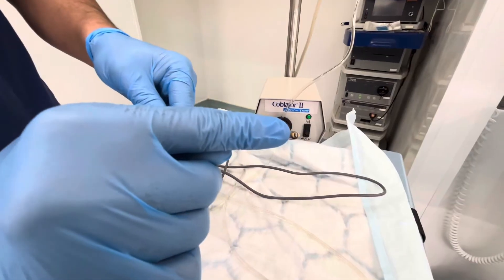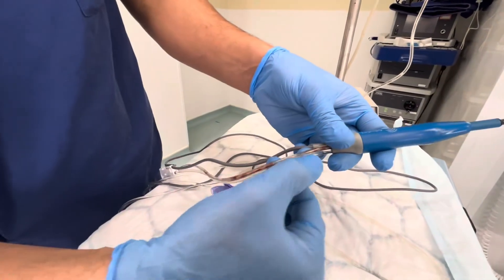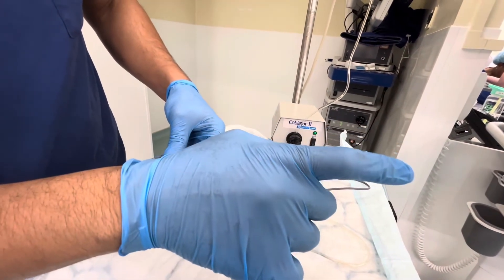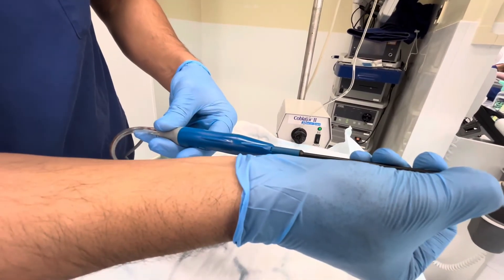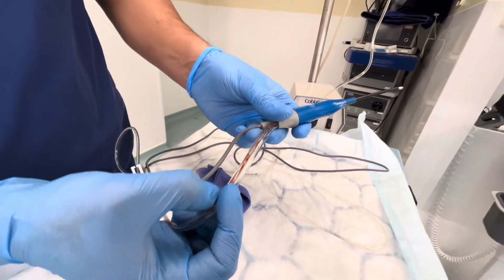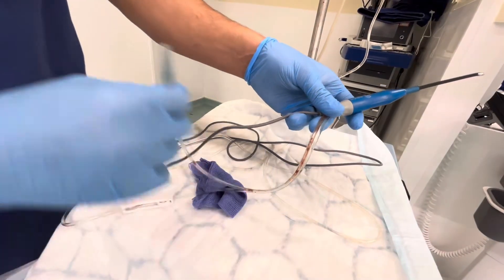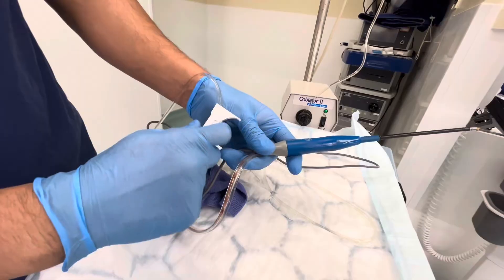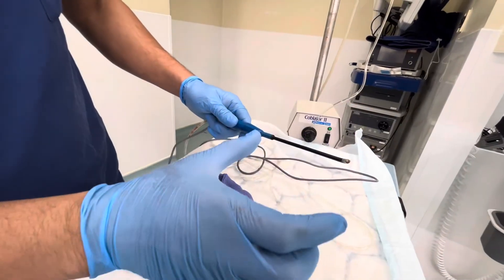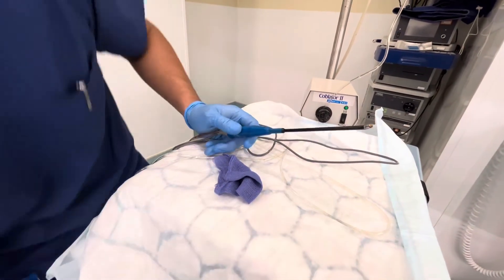For the plasma current, we want the surface of the electrode to be filled with liquid — saline — for which we have this channel. From here the saline will come in and come out. Excess saline will get suctioned from here. The red thing is the blood and saline — excess saline — which gets suctioned. This is the end where we connect to the suction. We have a channel where we can control the flow up and down. Whenever we use this, the liquid goes on top of it, a current is formed, and it evaporates the tissue. This is controlled by the foot pedal.